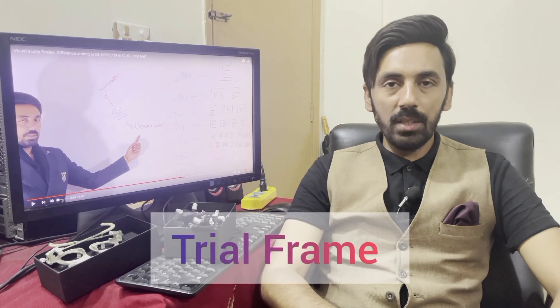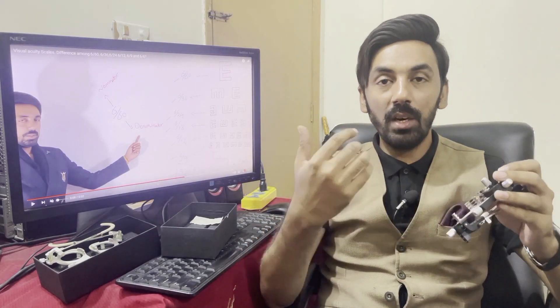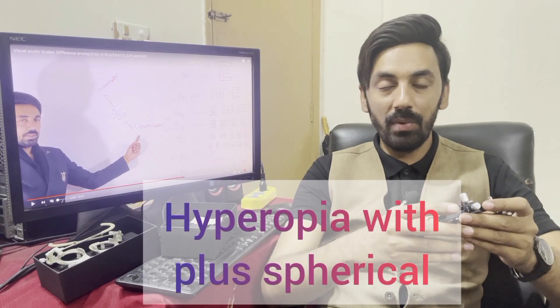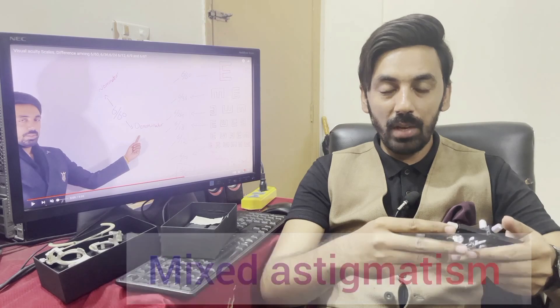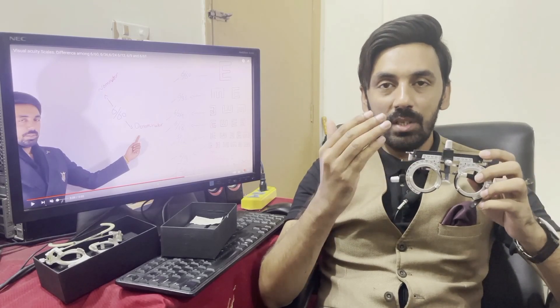Today's topic is about the trial frame. The trial frame is a device which allows different types of lenses in its different compartments. We can correct myopia with minus lenses, hypermetropia with plus spherical lenses, and astigmatism with cylindrical lenses. There are different types of astigmatism: simple, compound (myopic or hyperopic), and mixed. We need a trial frame with many compartments to accommodate these different lenses and accessories.